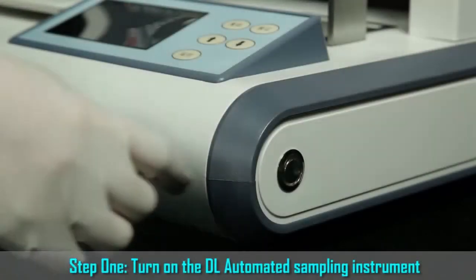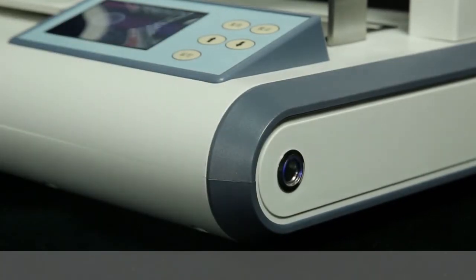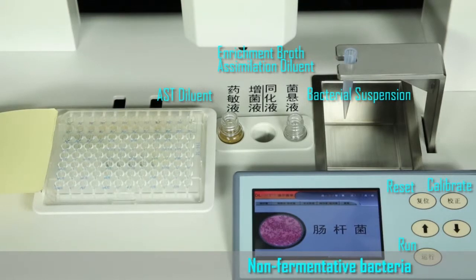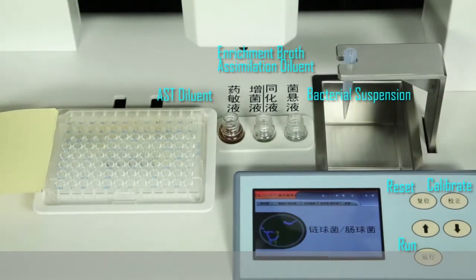Step 1. Turn on the DL automated sampling instrument. Step 2. Press the direction key. Choose the function you need from the screen: Enterobacteria, Non-fermentative bacteria, Staphylococcus, Streptococcus, Fungus.